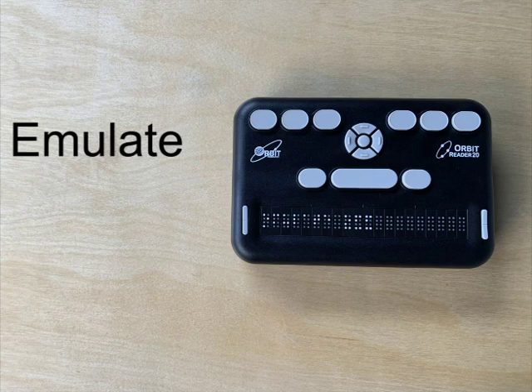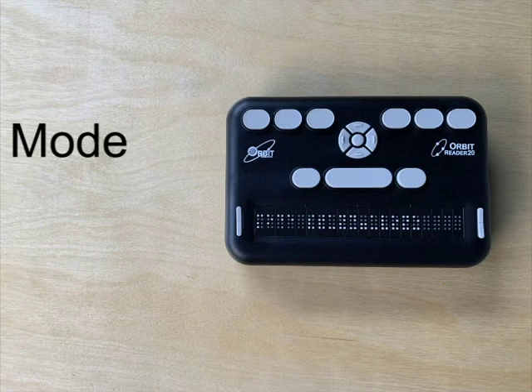Emulate. This allows you to choose how your device appears to the host screen reader in remote mode. Mode. This lets you toggle between remote and standalone mode. By default, this is set to standalone.